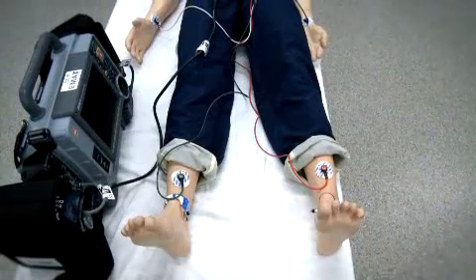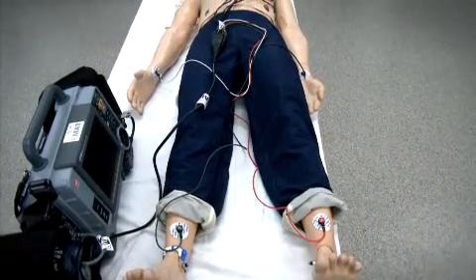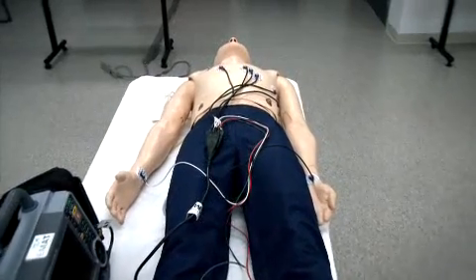In the pre-hospital environment, 12-lead acquisition is a very specific diagnostic tool used to determine the presence or absence of ST elevation MI. The absence of ST elevation does not equate to the absence of a cardiac event.